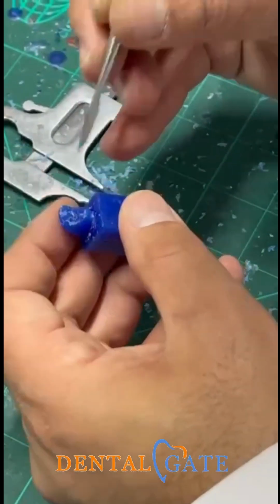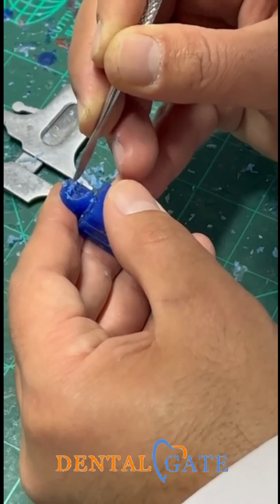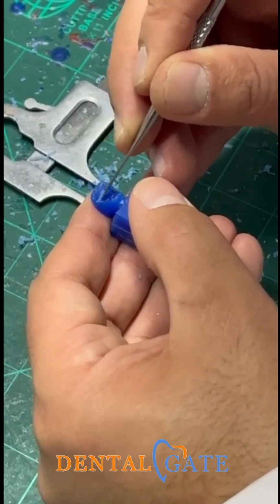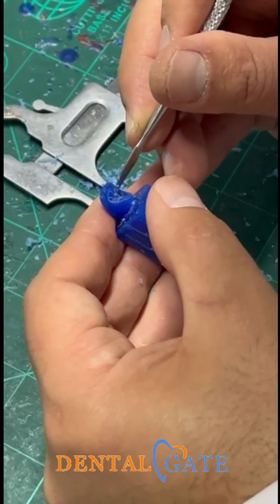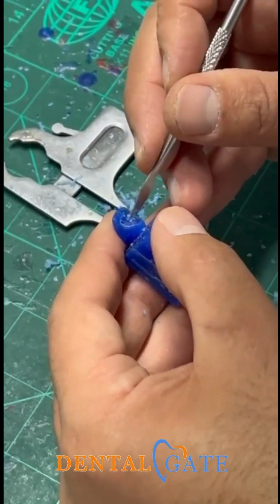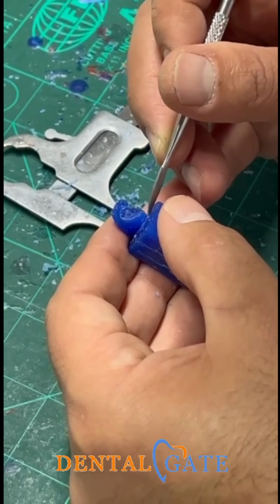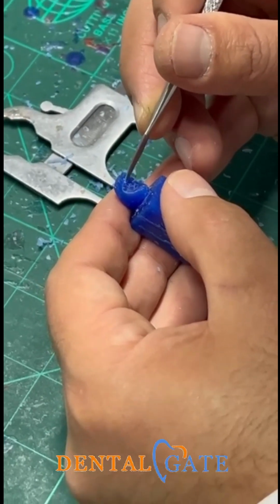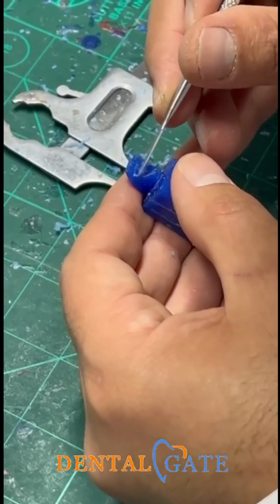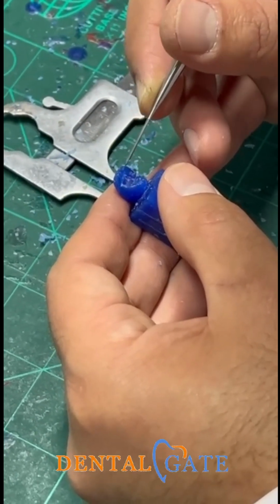It's very easy to make because you had an outline, you had a measurement, you had a reference now. Sometimes if you add advanced features, you can put grooves here in the cingulum, but I don't need it now. Just keep going to make a thick marginal ridge in the lingual and a centered cingulum that will connect with the incisal edge.